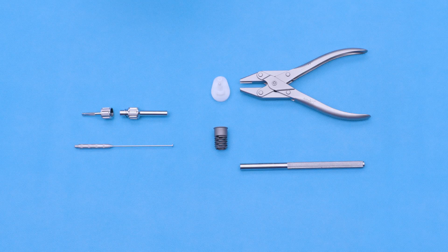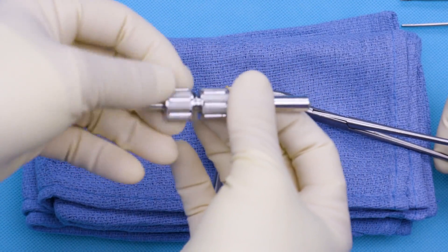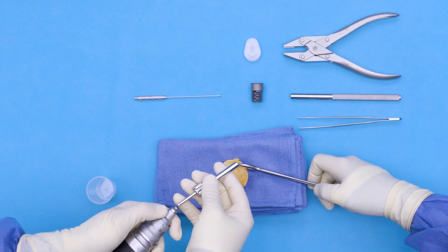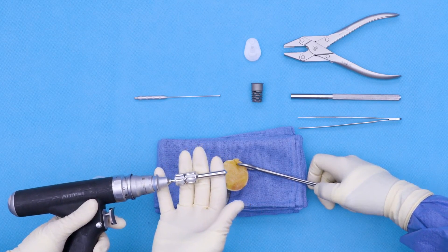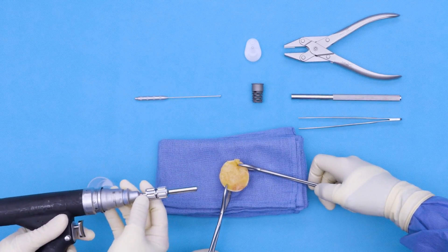I typically find that the eight millimeter works perfectly for the vault lock system. A plunger can be provided for simplified graft removal. The OsteoAugr here can be assembled like so. Your scrub tech on the back table can go ahead and assemble this. I find that the eight millimeter OsteoAugr works the best when prepping and bone grafting our vault lock.